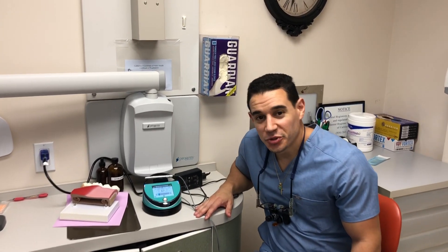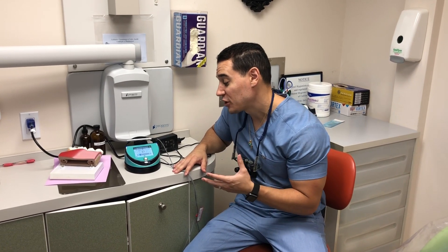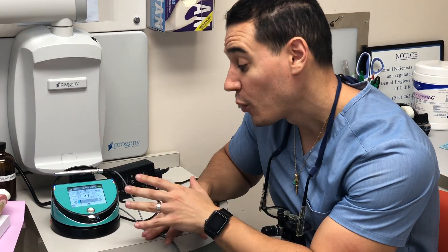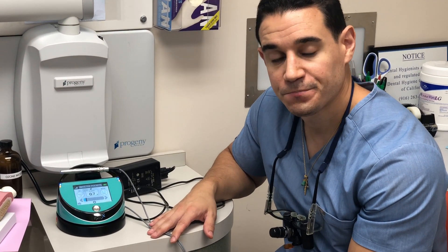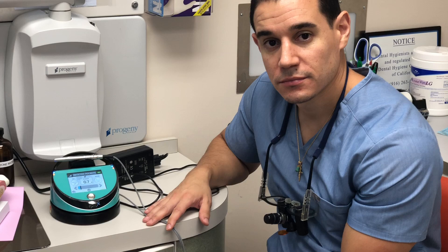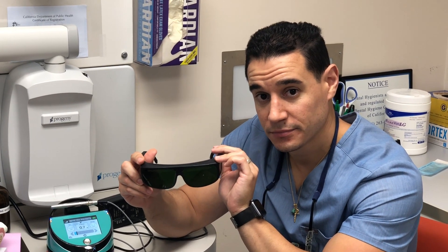Be aware that this simple tutorial video is just meant to show you how to use the basic functions of this unit. It doesn't replace the laser certification you can obtain through BioLase, which will give you much more in-depth information regarding lasers, how they work, the settings of this unit, and much more. So you should still take the laser certification that BioLase offers. Regarding safety regulations, there is also eye protection to wear — it's very important to wear these. Although you never point the laser directly at your eye, this eyewear is meant to protect you from the wavelengths of the laser. Wear these when operating this device, and the patient has a pair as well.